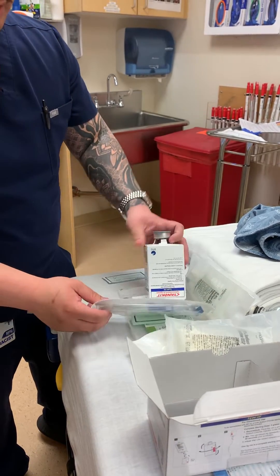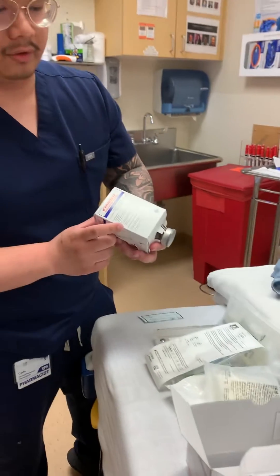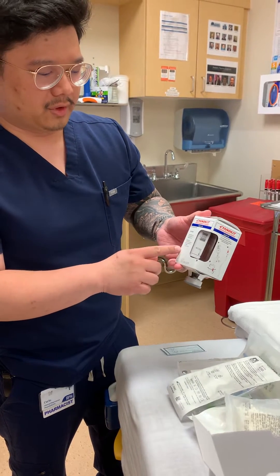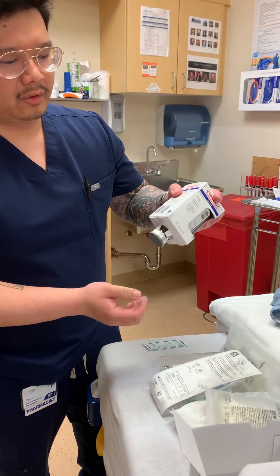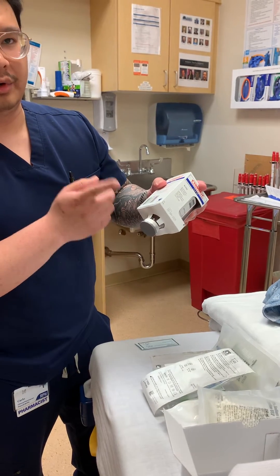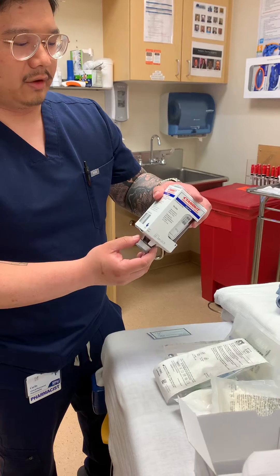In children, since it's an actual 70 mg per kilo dose, it'll be a specific volume. When you dilute it with 200 ml, your final concentration should be 25 mg per ml. In that case, I would grab the vented Alaris tubing, put it on the pump, and do a manual infusion for the desired volume to get your dose.